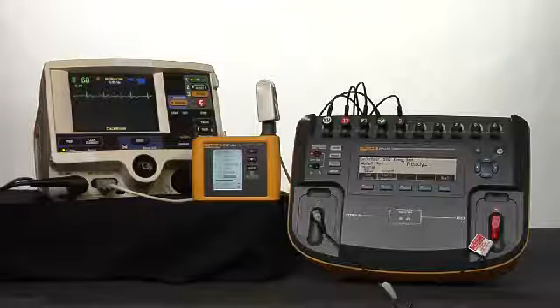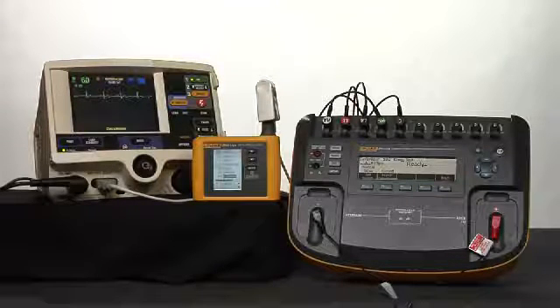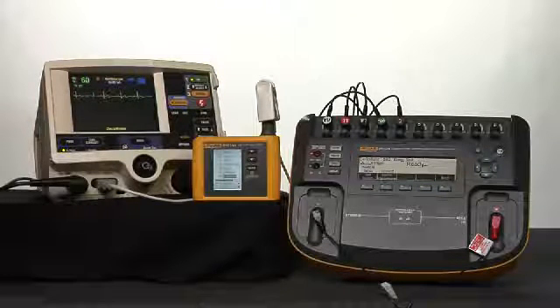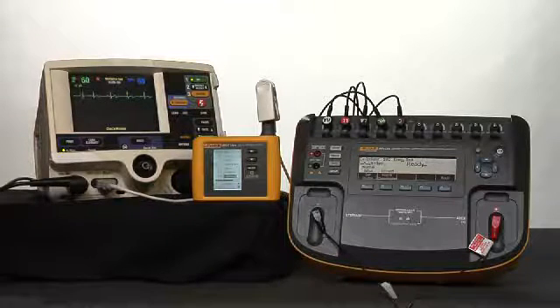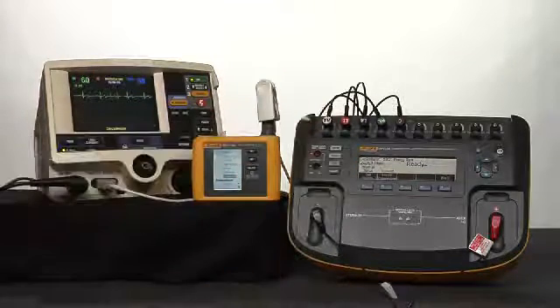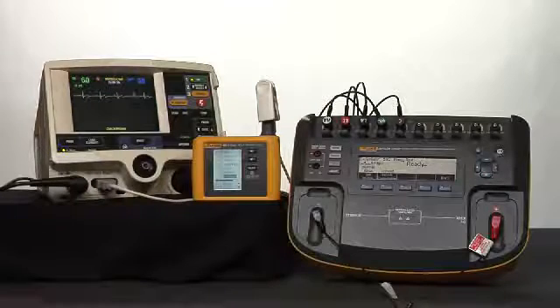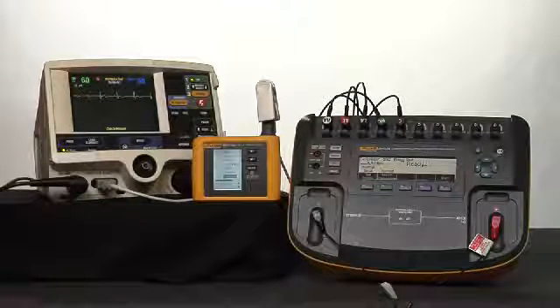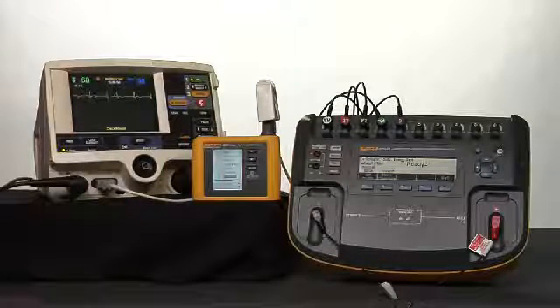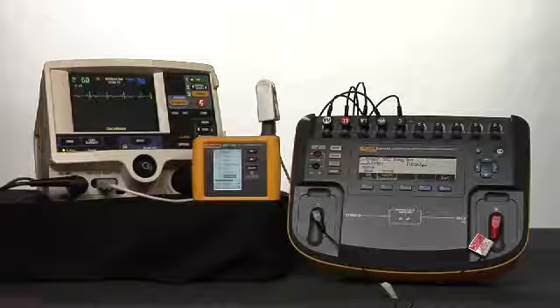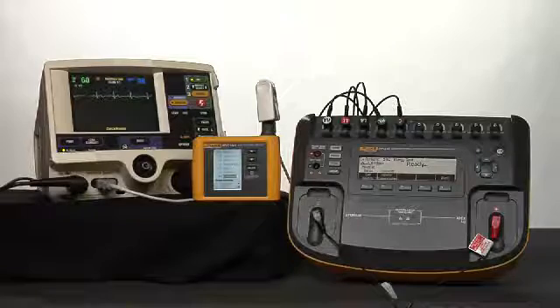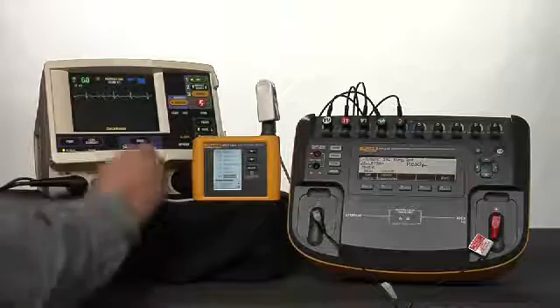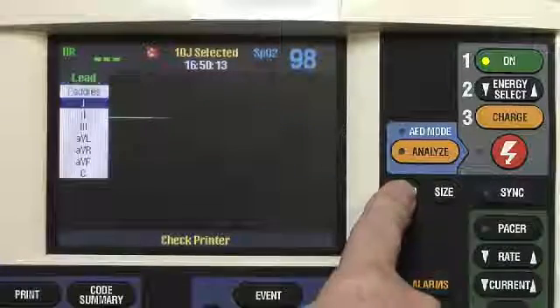The first thing we want to do is connect the 5-lead ECG cable between the device under test and the Impulse 7000. We're now going to program the Impulse 7000 output for a 60-beat-per-minute NSR. Setup for 60 beats per minute normal sinus rhythm. We're going to set the device under test lead selection to lead 1. Setting to lead 1.